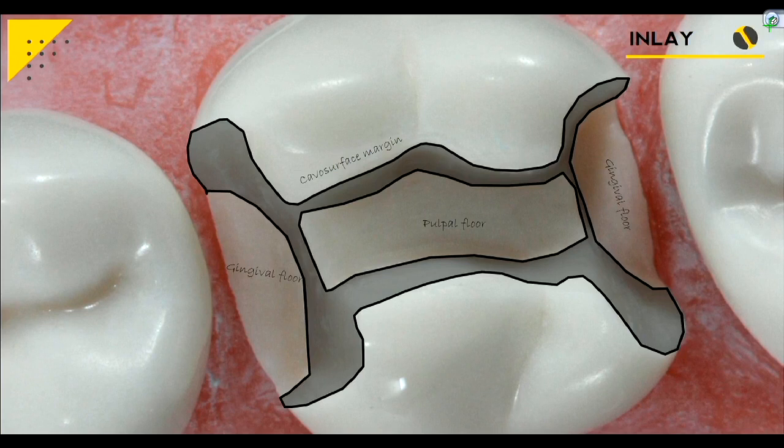If one of your walls is undercut, you won't see that grayed-out region and you'll know you have to lean your burr. Compared to crown preps, you need to exaggerate that draw or divergence a little bit more than you're accustomed to. Inlays are a lot more technically challenging than any crown prep because you have more walls to look at — boxes on both sides, your central groove, your isthmus, your axial walls everywhere. You just need one little undercut area and the whole thing will get hung up.